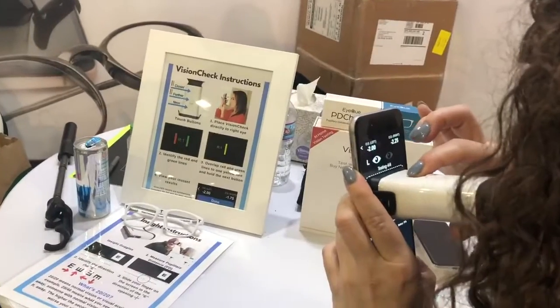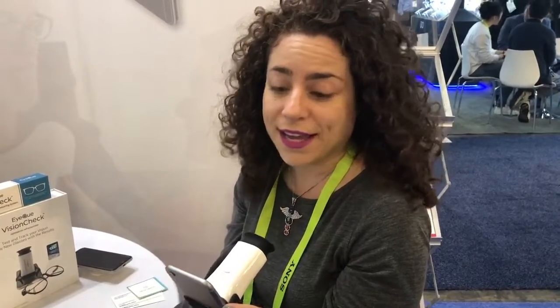Wait, I'm done. Like, it's a wrap! Once you get it, it's super easy. You just have to be patient and understand the process. Once you get it, though, it's a cinch, and it goes really quick. It's pretty incredible, actually, that this shows you without having to go to the doctor and going through all that process.